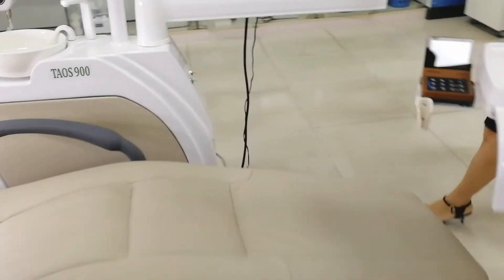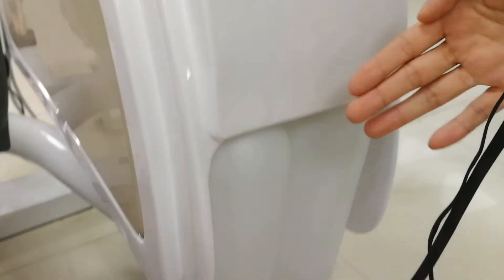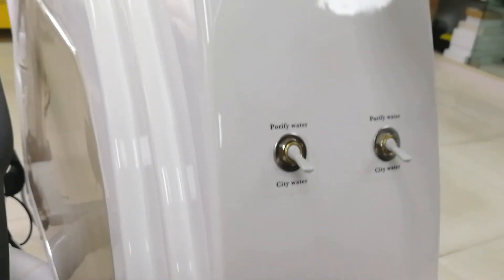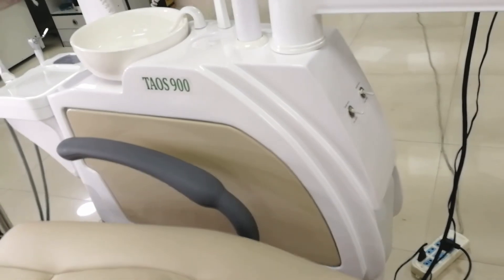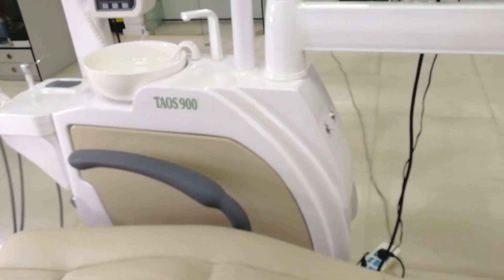This chair comes with 2 bottles. One bottle is for distilled water, and the other bottle is for disinfection liquid. When dentists perform certain special procedures, this disinfection liquid provides benefits. It is used via the air-water syringe.